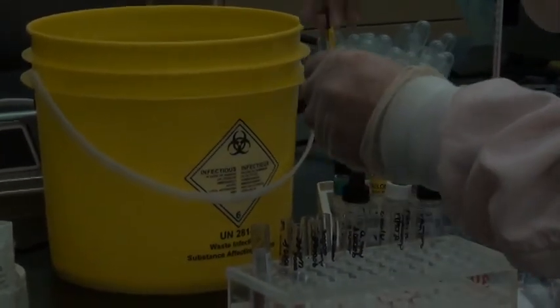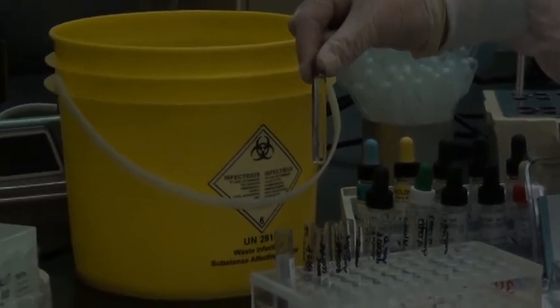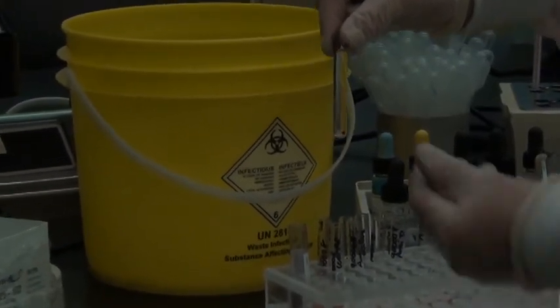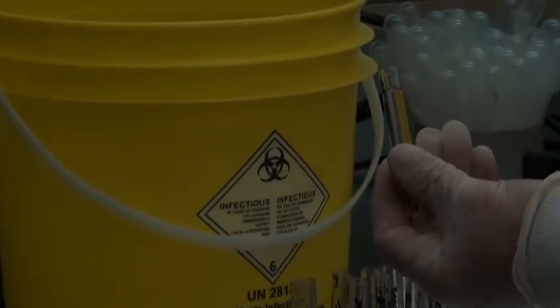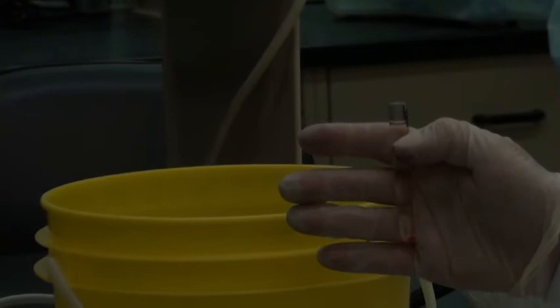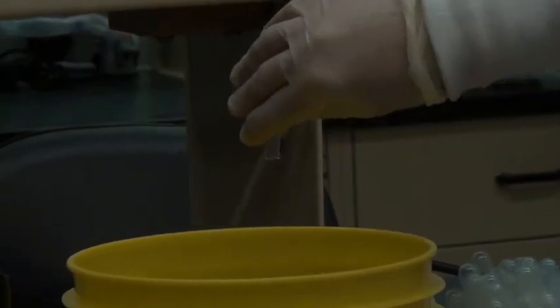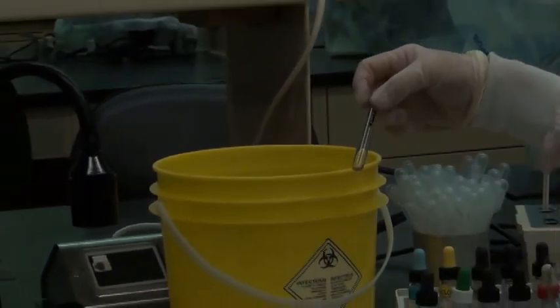So here's my screening cell 2. After the 45-second spin, there's the cell down there at the bottom. There's all the saline, and I'm going to do a nice hard dump. So the button against the palm of my hand. So you can see the button there. There it is. See it? And we're going to do a nice hard dump. So hold your tube, get ready. Hard down, and another hard down, and back up. And that's real time. That's about how fast you want to get that done.